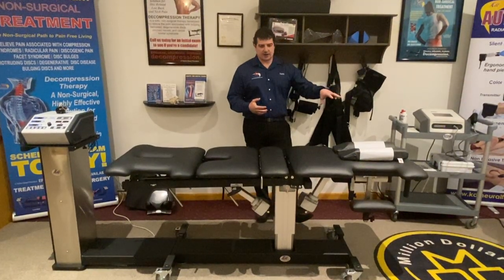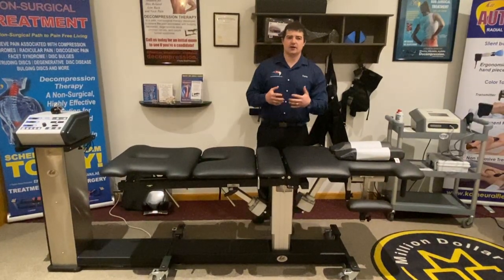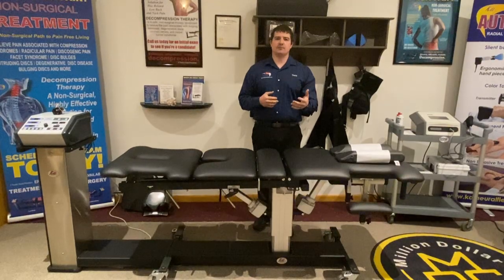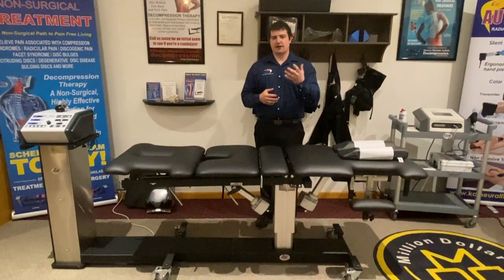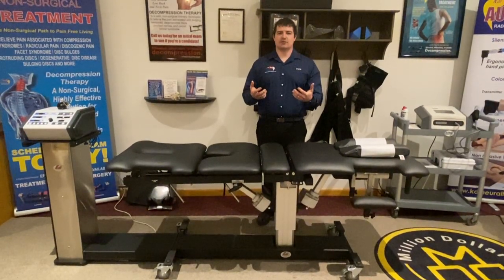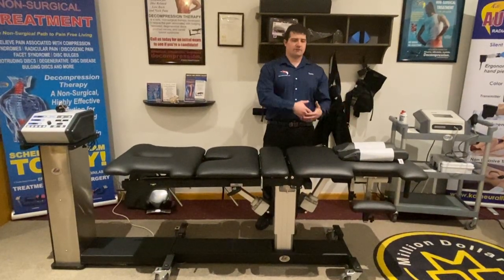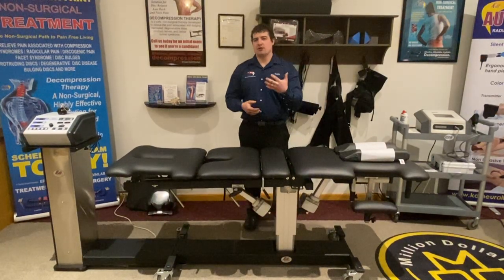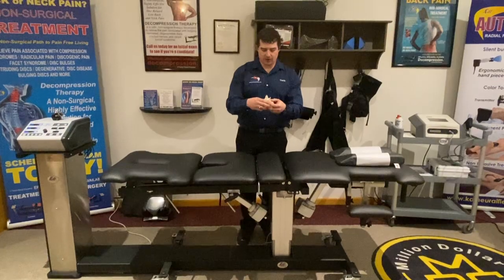The front design was always an issue — trying to get a table that allowed comfortable prone positioning for patients. Prone is incredibly important in the younger patient population because of the gravitational bias and the centralization phenomenon with a posterior-posterolateral disc herniation. What we've learned is it's more effective, if possible, to get them prone versus putting everybody on their back, which creates an arbitrary application, and you can see right on this spine model here.